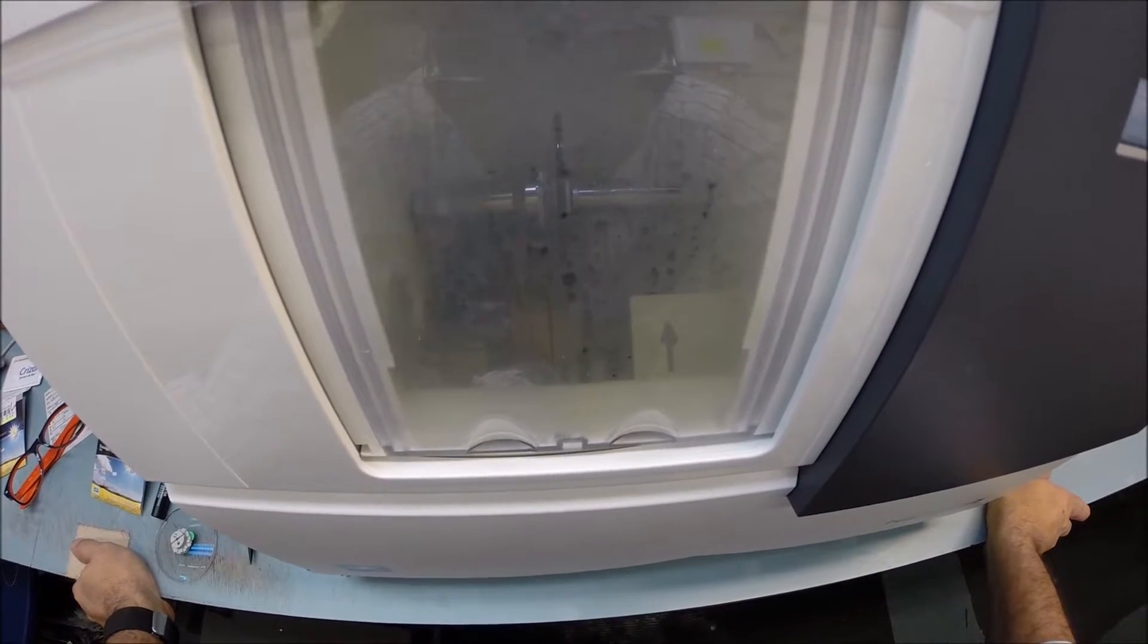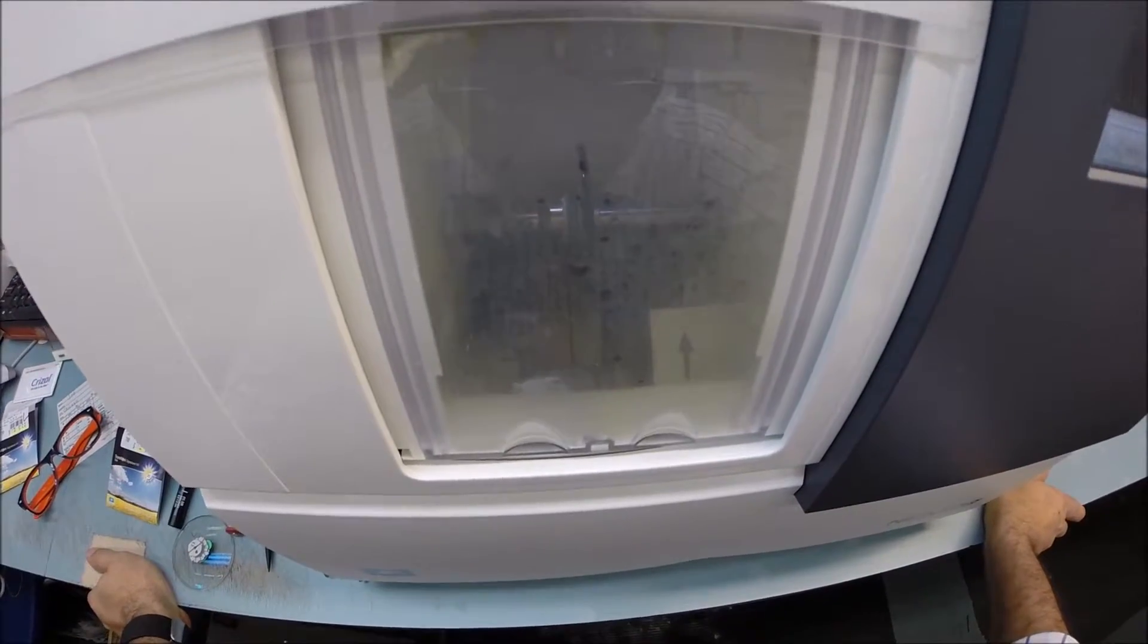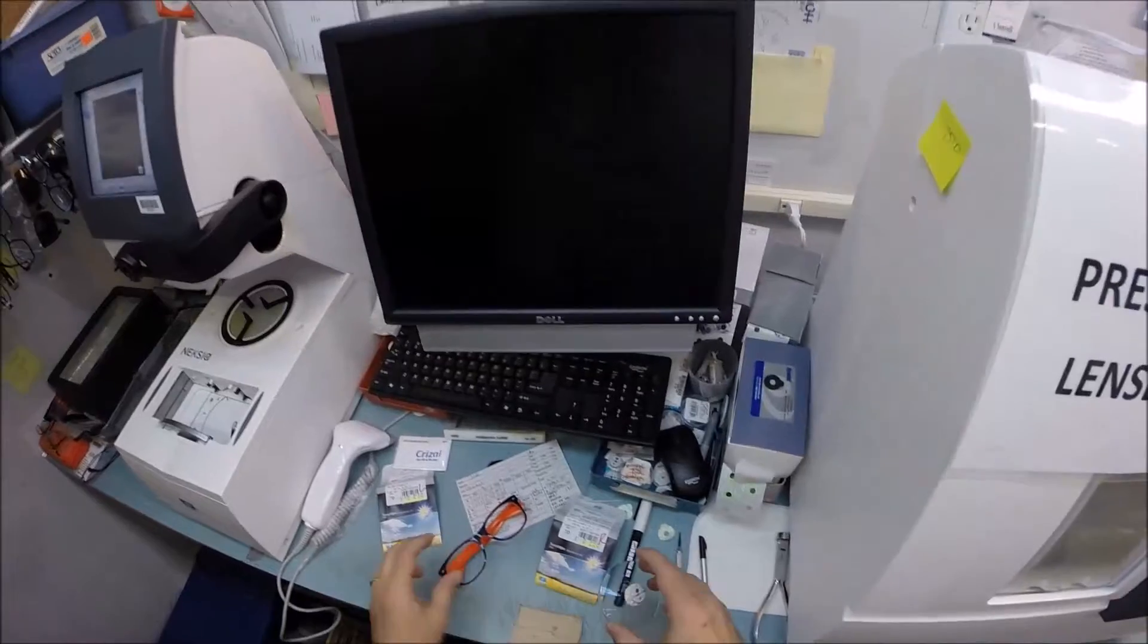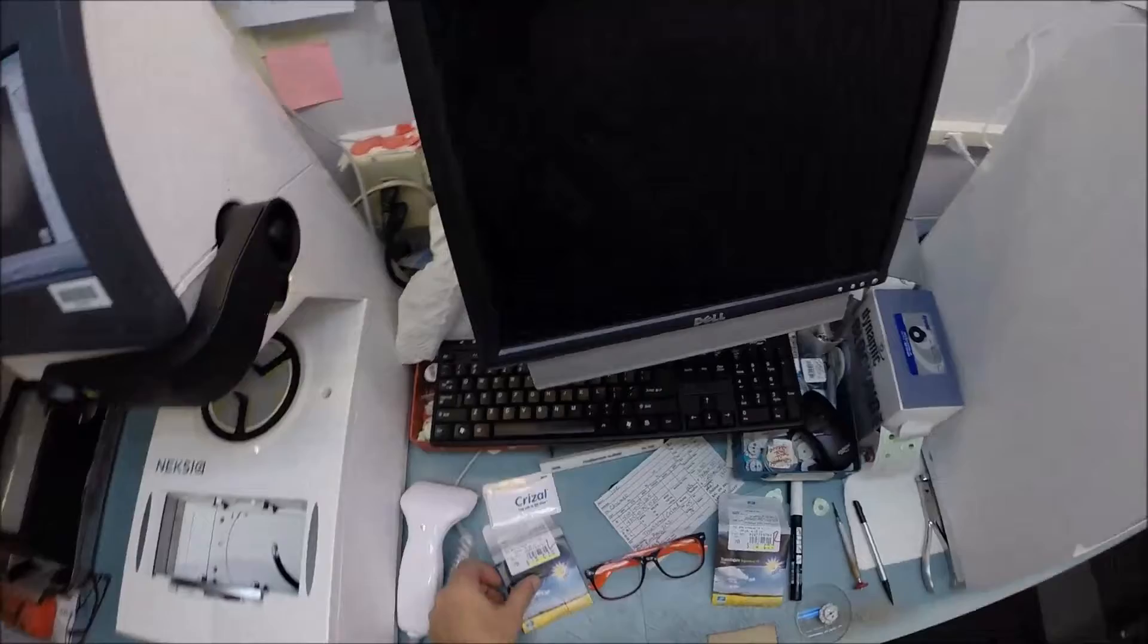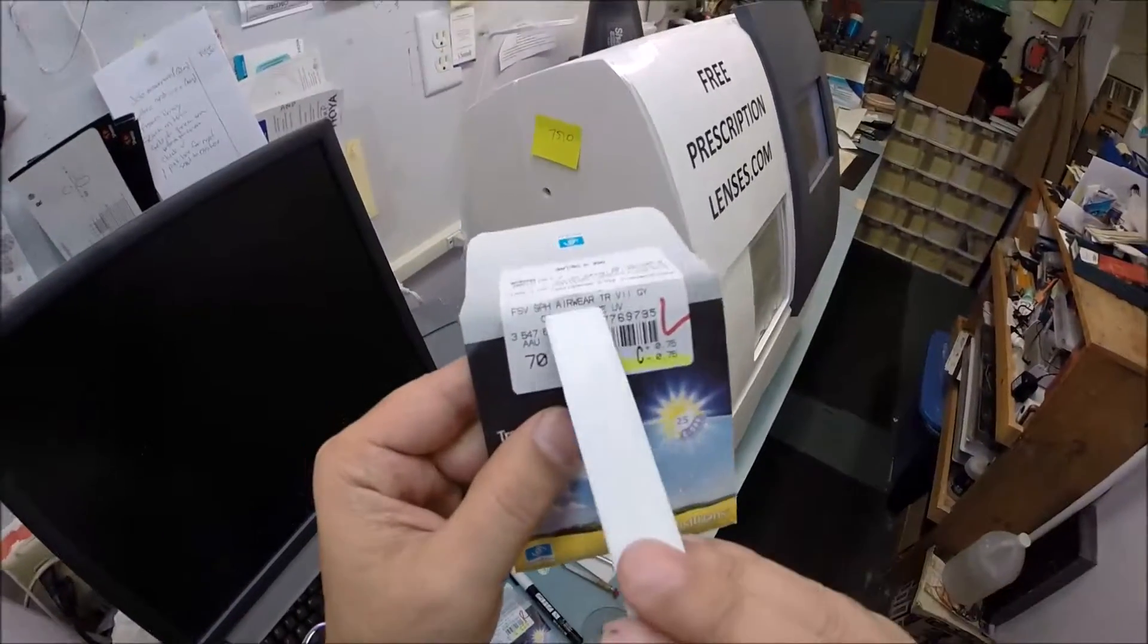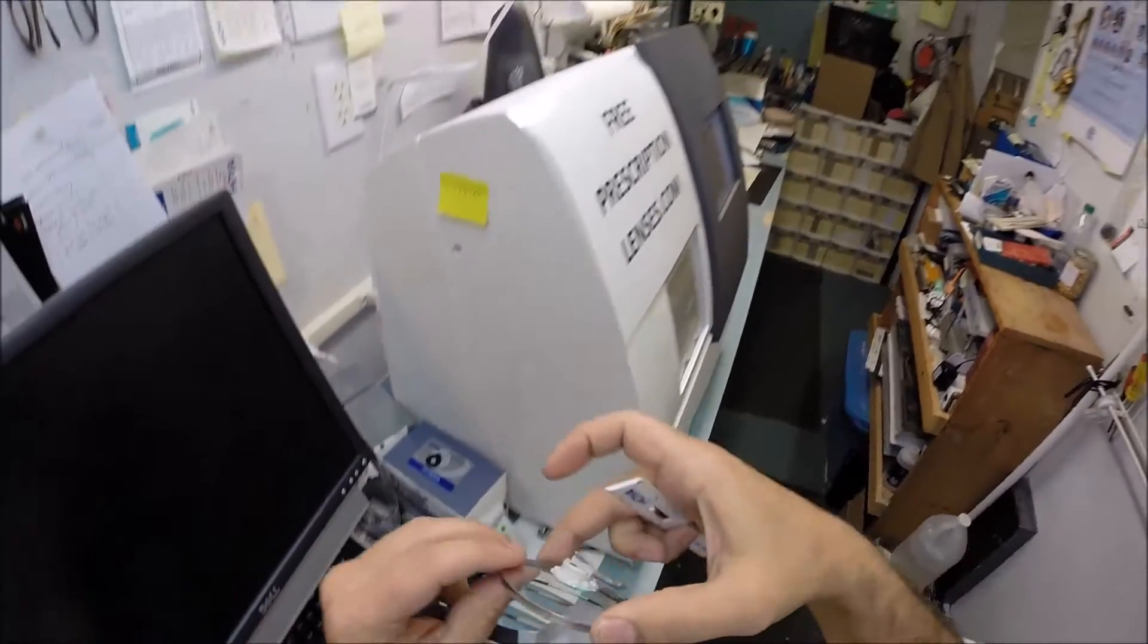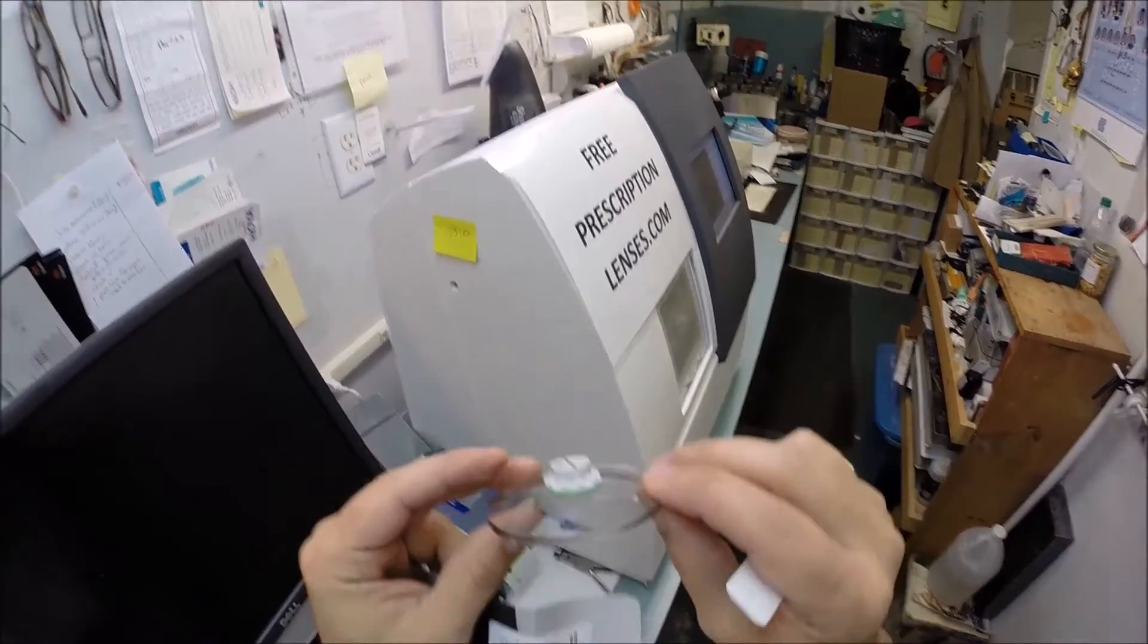In just a moment you're going to hear a grinding sound, and that is the polycarbonate material being removed from your lens. Now these are stock lenses, so I order them large so I can cut them down to fit into any frame that I may need to use.